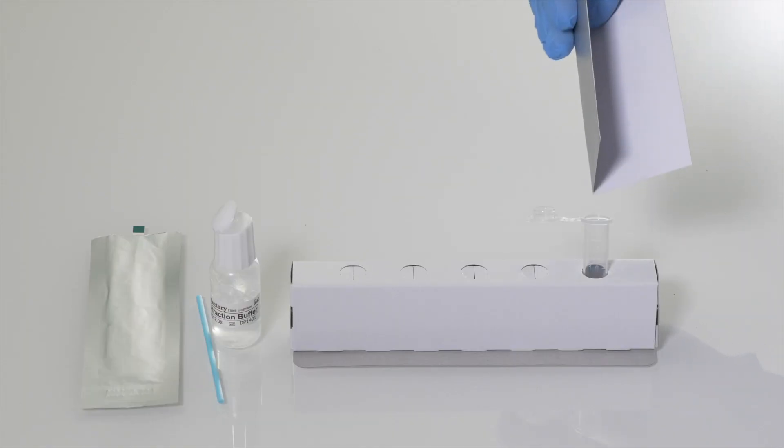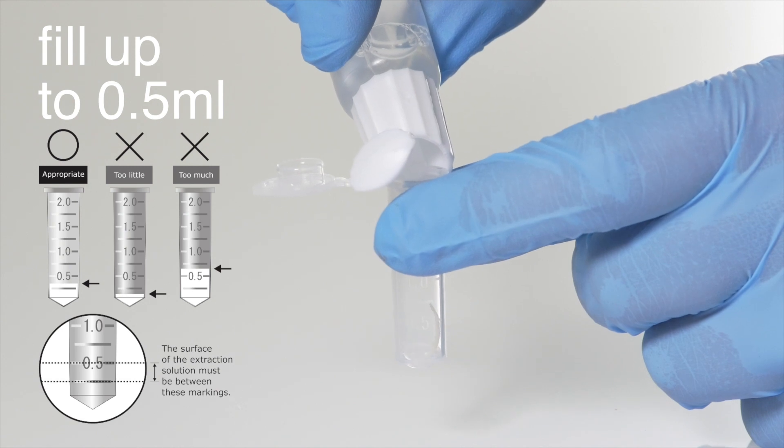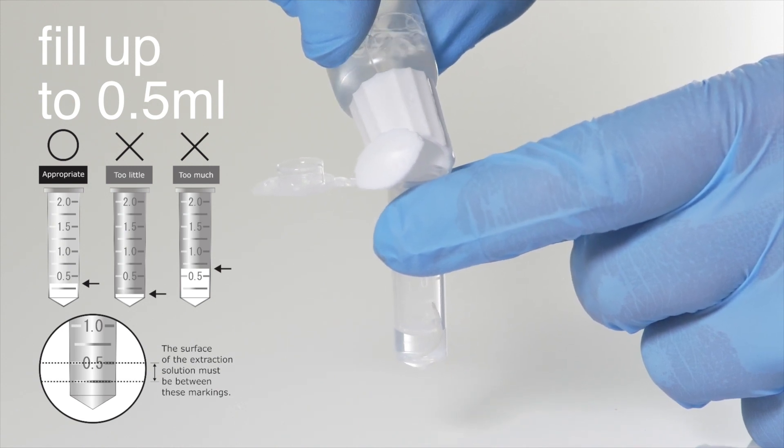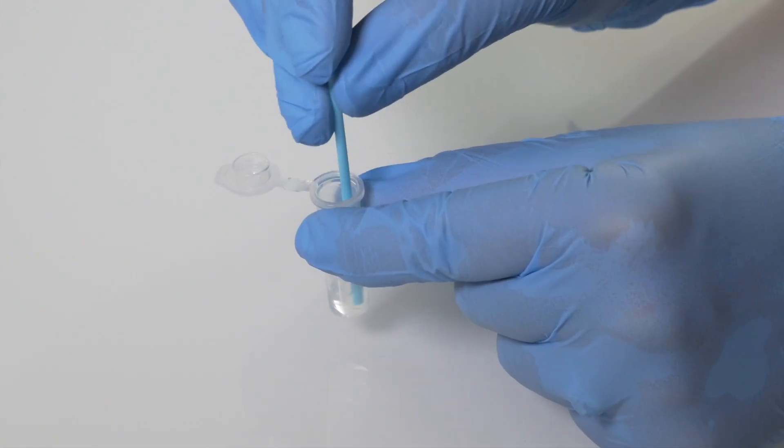The nail sample is added to the test tube. The extraction buffer solution is then added as shown. The solution should then be stirred at least 20 times.